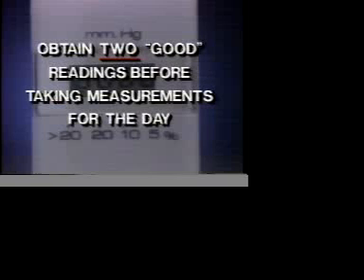Quickly turn the instrument tip up. If the TonoPen is properly calibrated, you'll hear another beep, and the word GOOD will appear on the display. You should obtain two readings indicating GOOD before taking measurements.